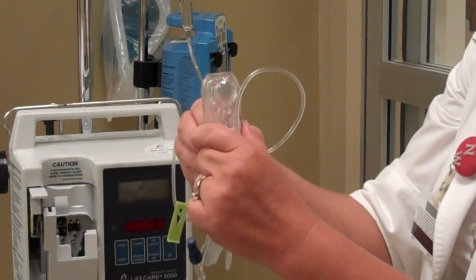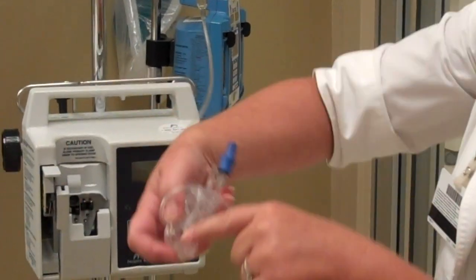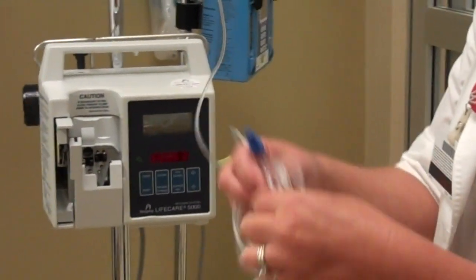You've got to keep your eye on this. We'll pull it out kind of slowly — and it's already spilling. I'm going to flip. As soon as you flip it, it's going to prime the rest of the way.